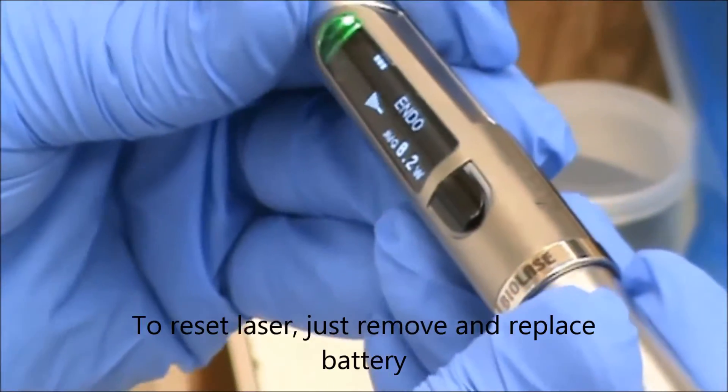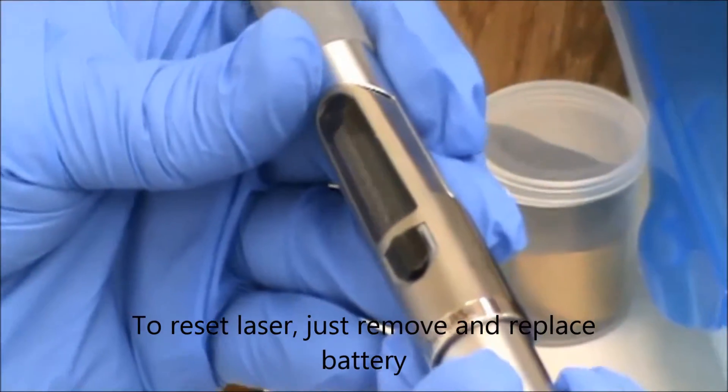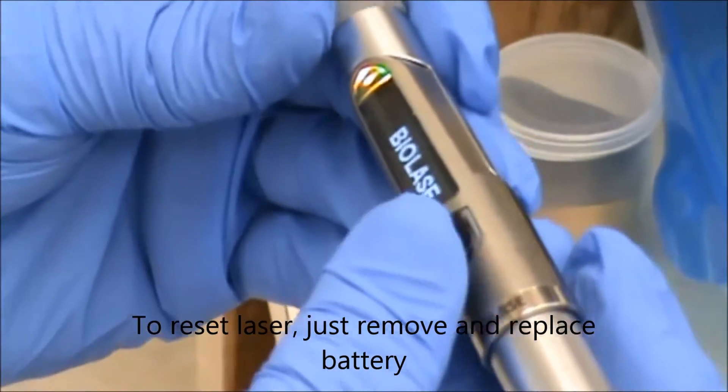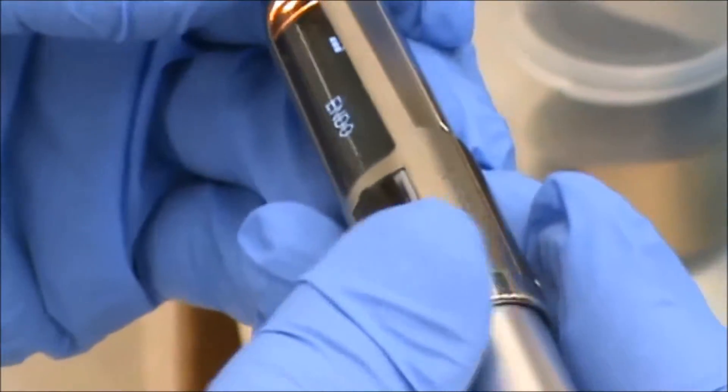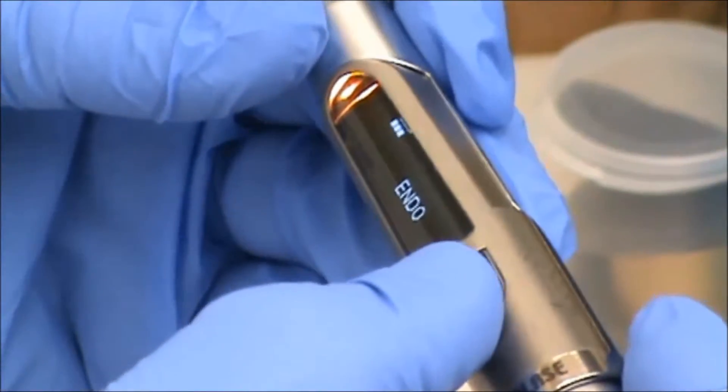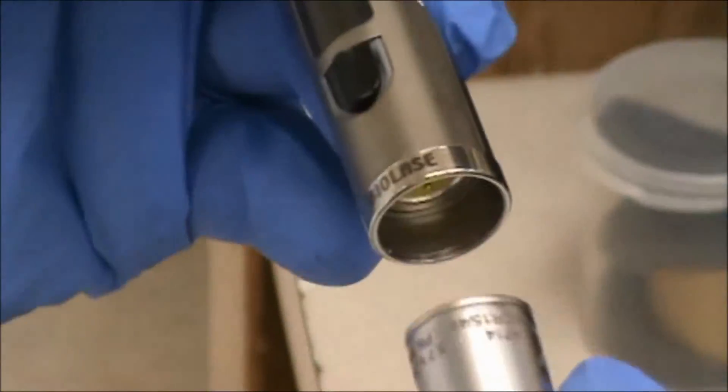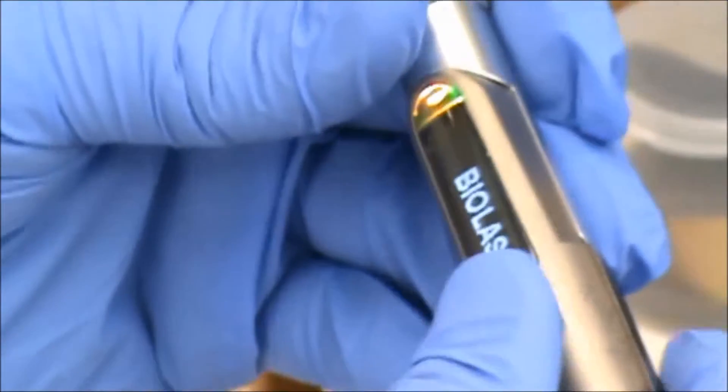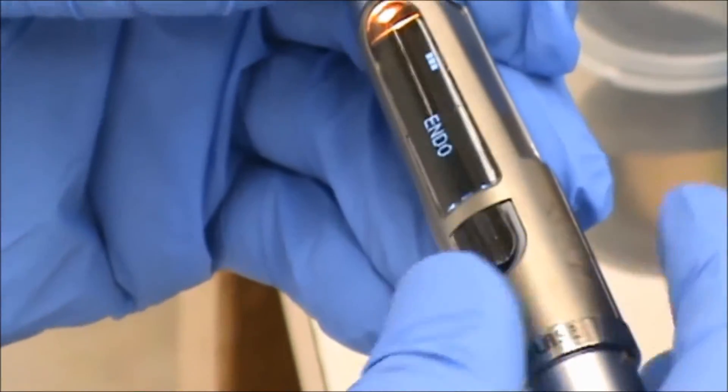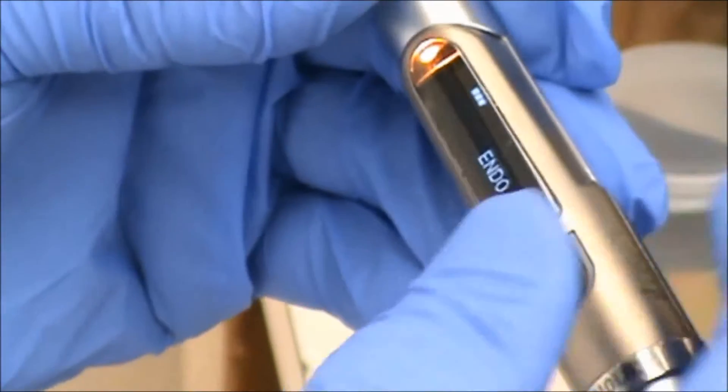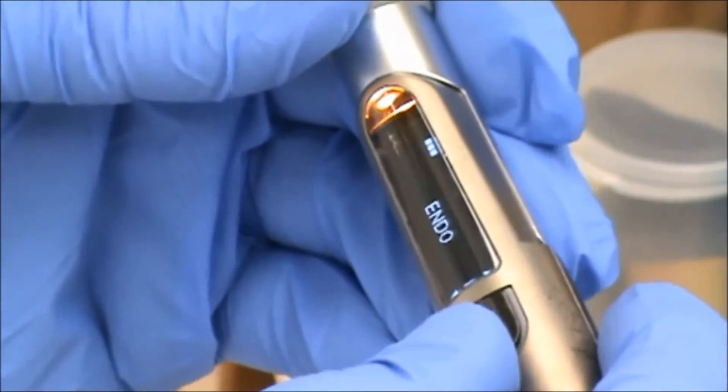We're going to have to try that again. It's touchy. You have to be careful not to push in on this while you're selecting or scrolling up or down.